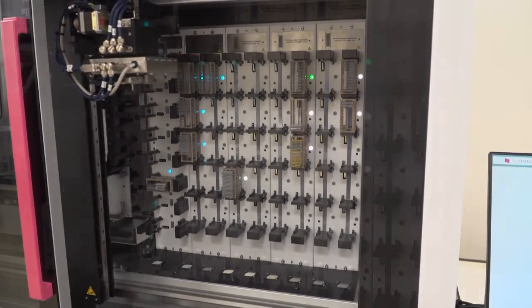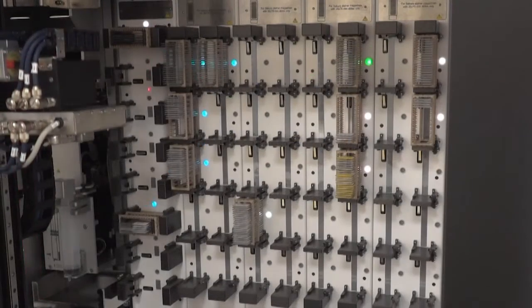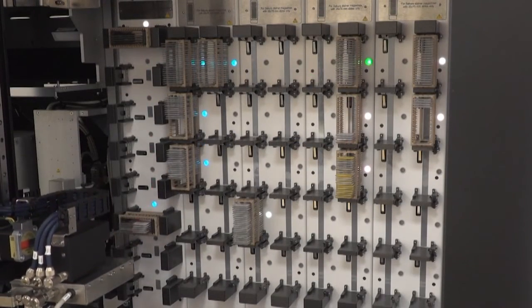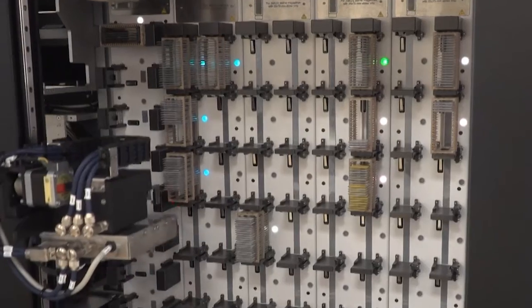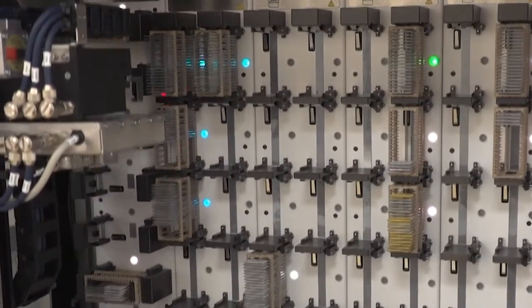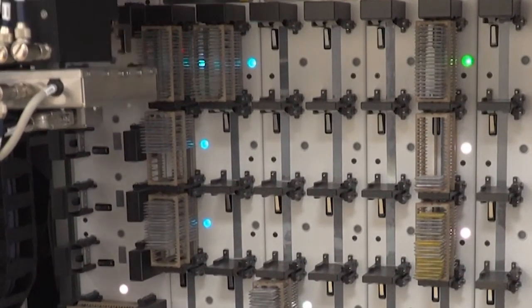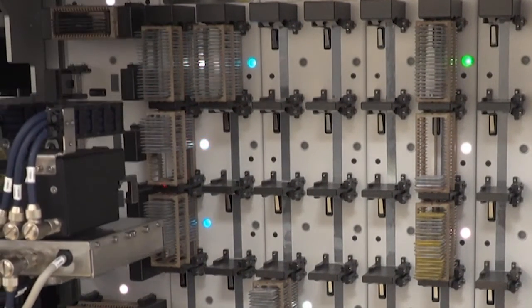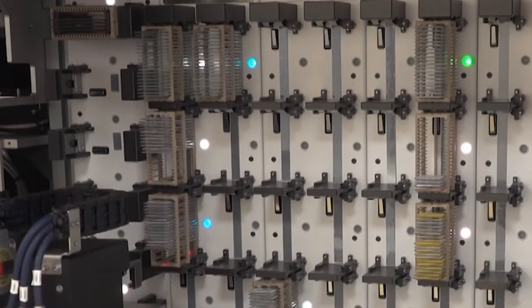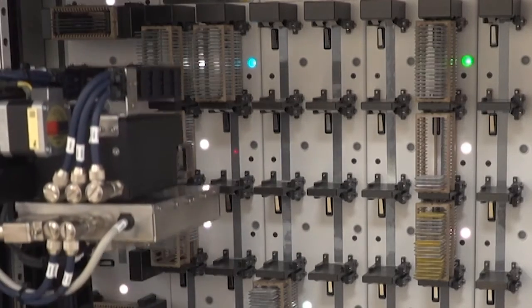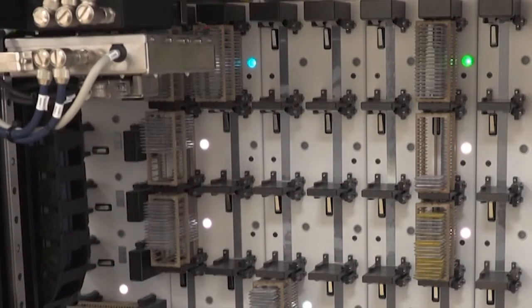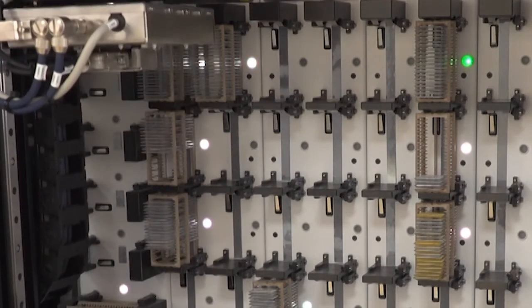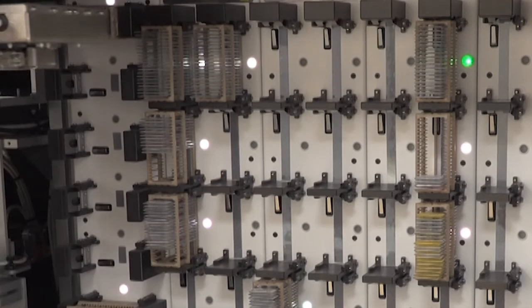It will also look at the blue, new racks, and check where the slides are. You see how the blue lights turn white when the slides are counted. This way, the scanner knows exactly how many slides are in the system, and in what racks.